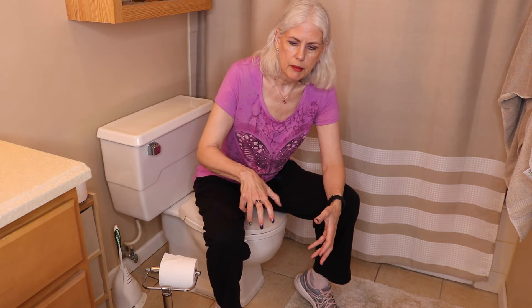Whether you have a colostomy or an ileostomy, I have a drainable pouch bag, so we'll show that. For non-drainable bags, some people still drain them — they just detach them, empty them out, clean the ring off, and put it back on. So there is that option as well, but I'm going to show you what I have.